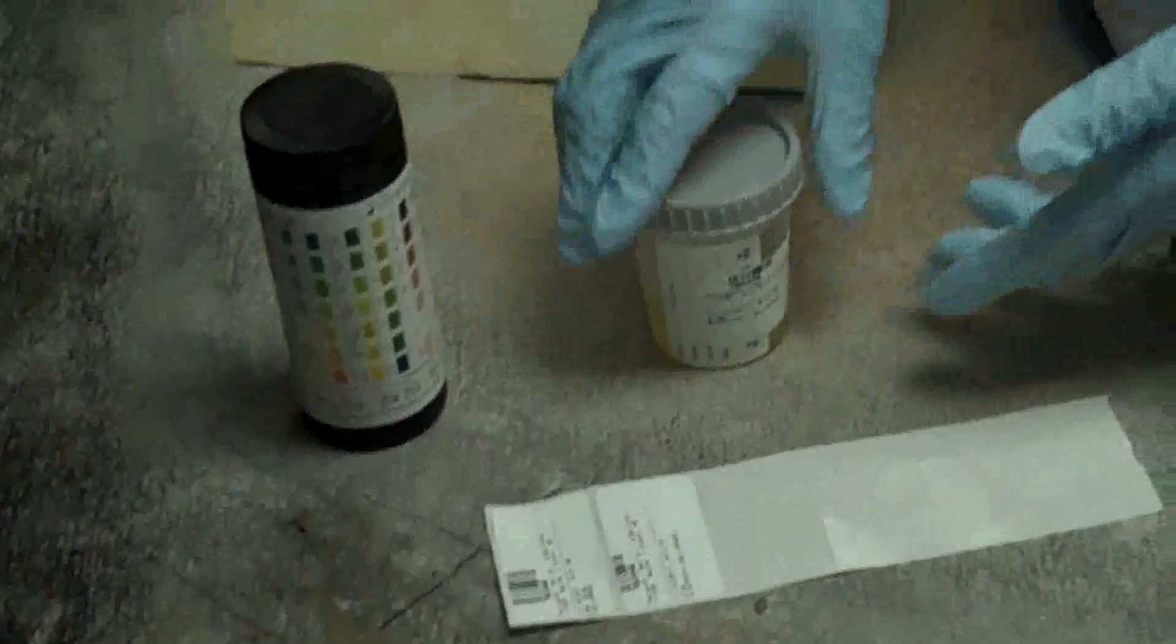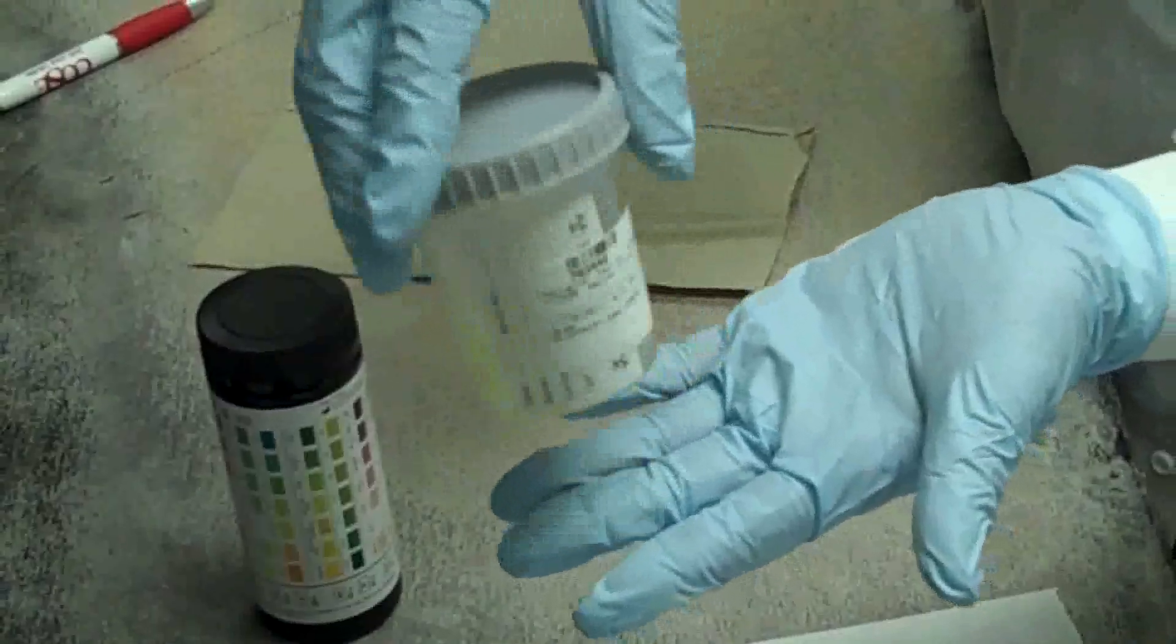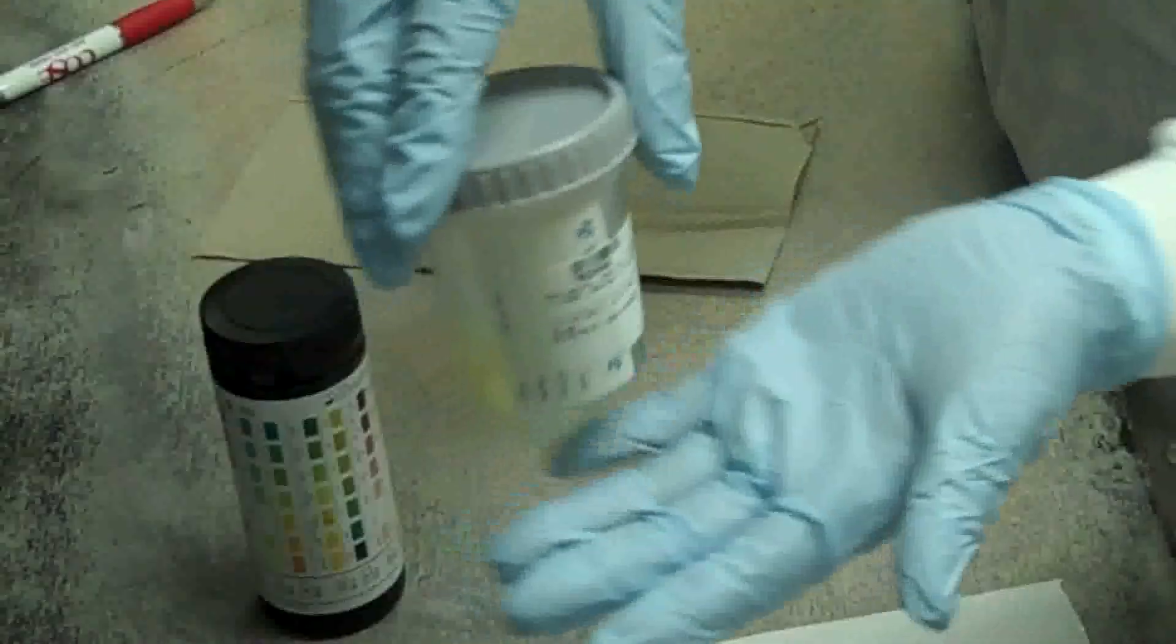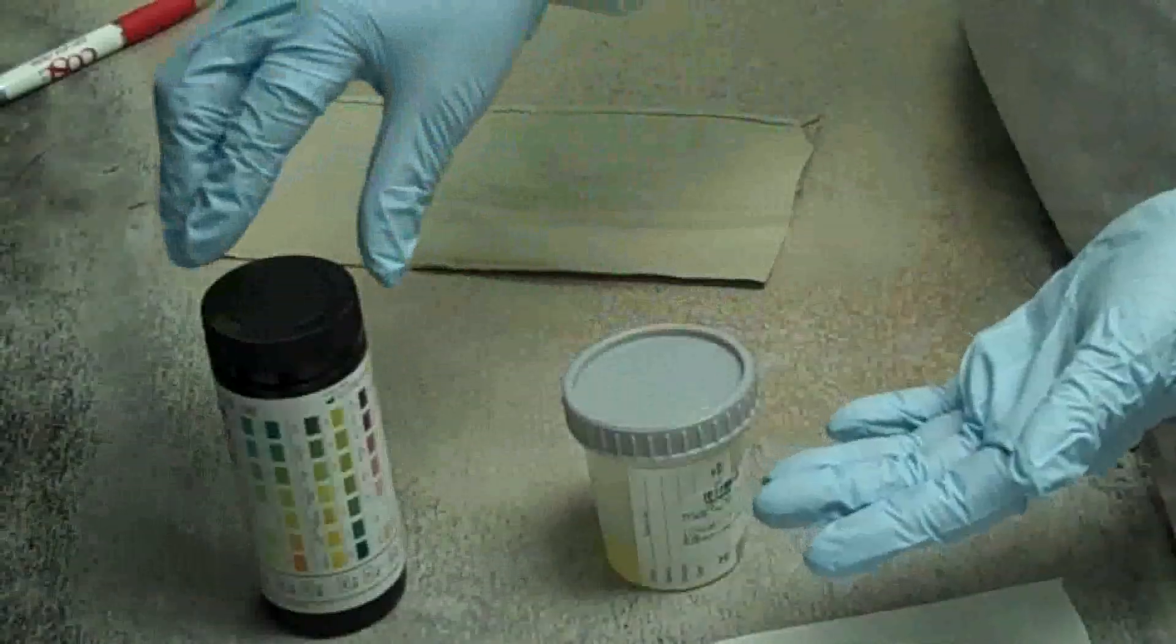Mix urine sample by swirling the urine cup. Open urine sample.